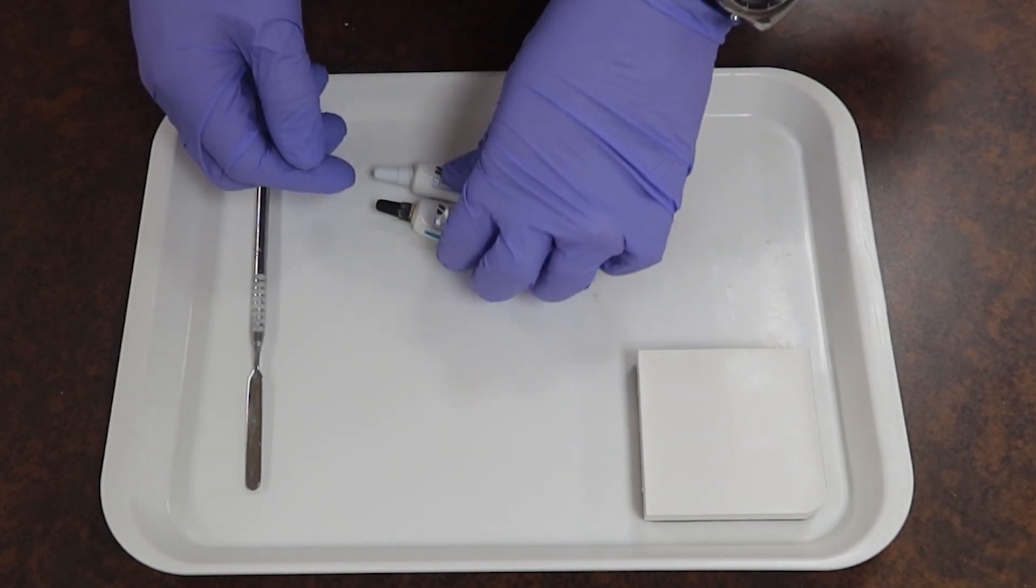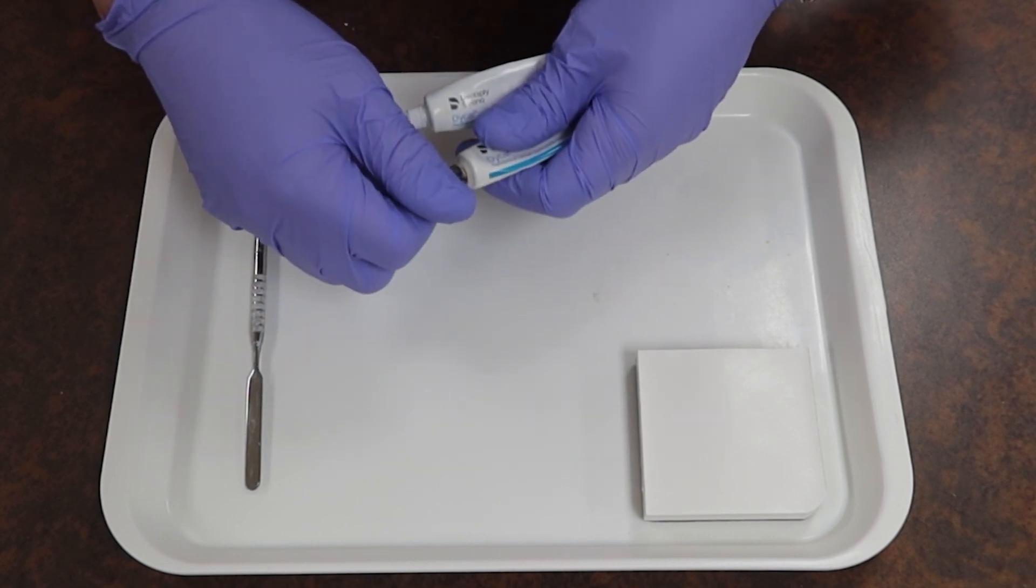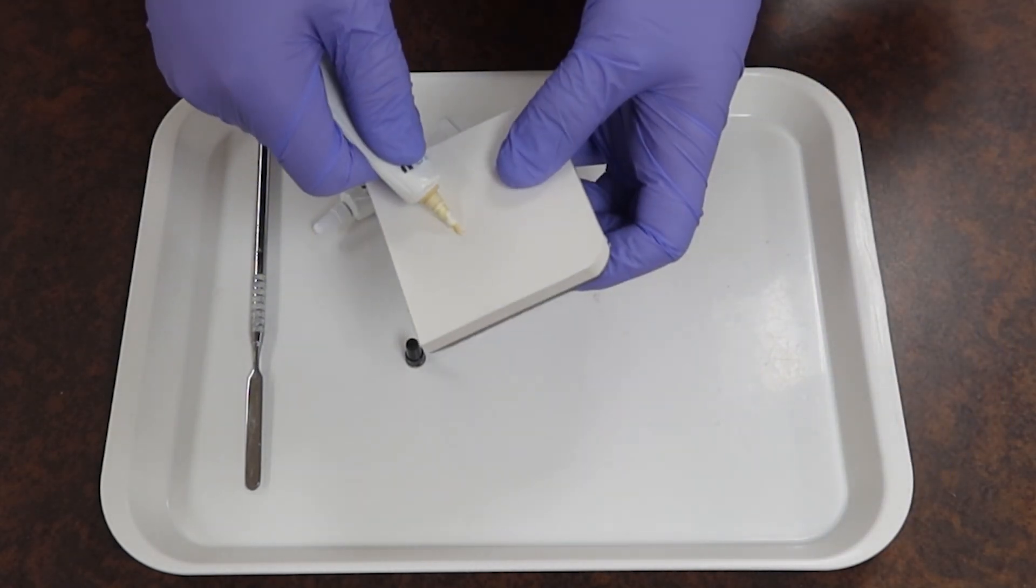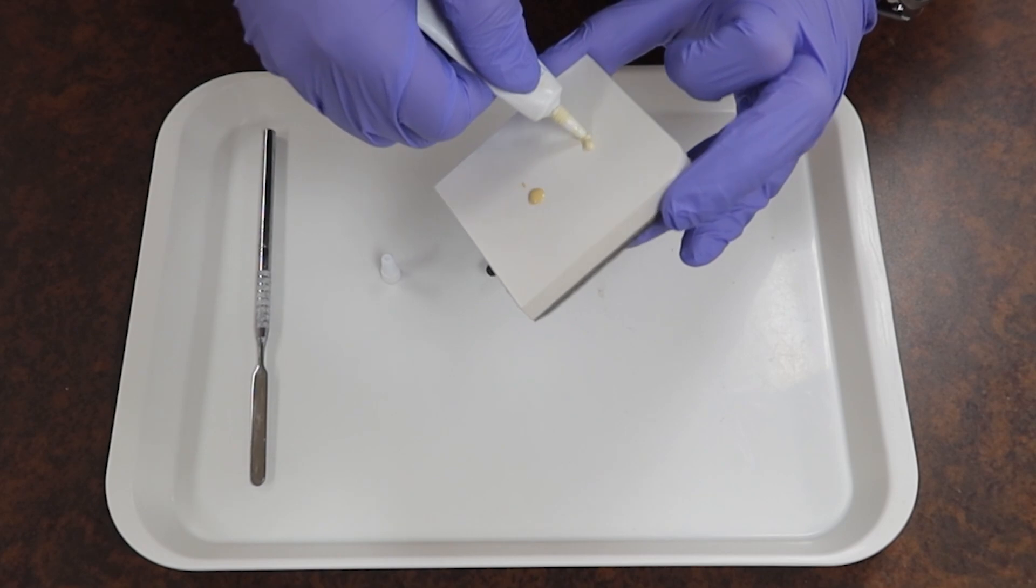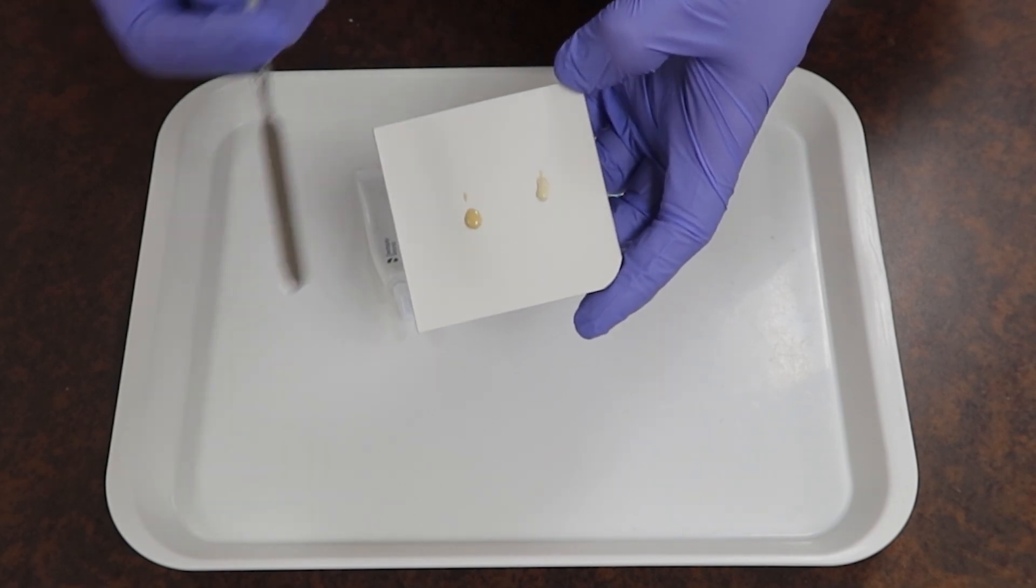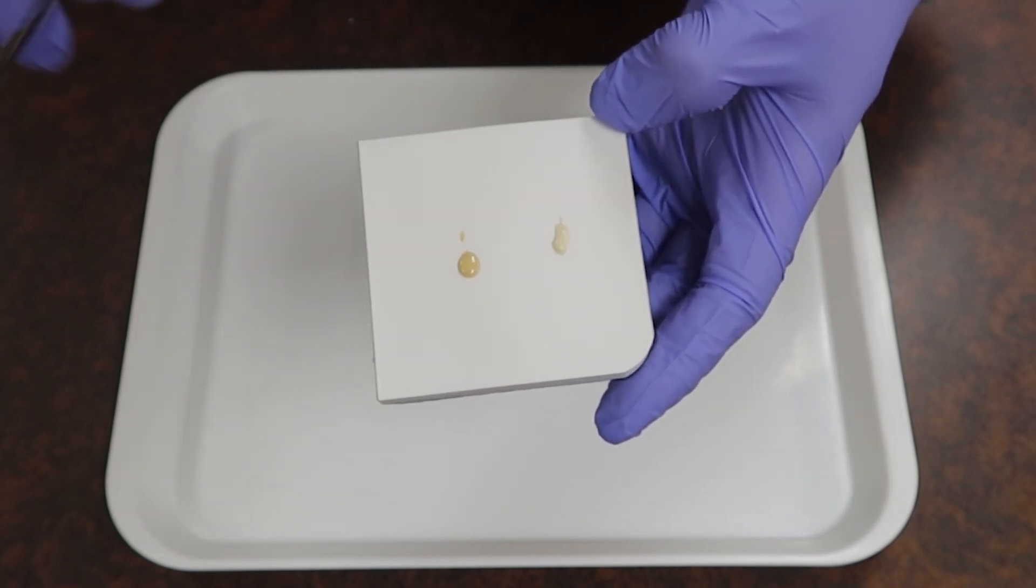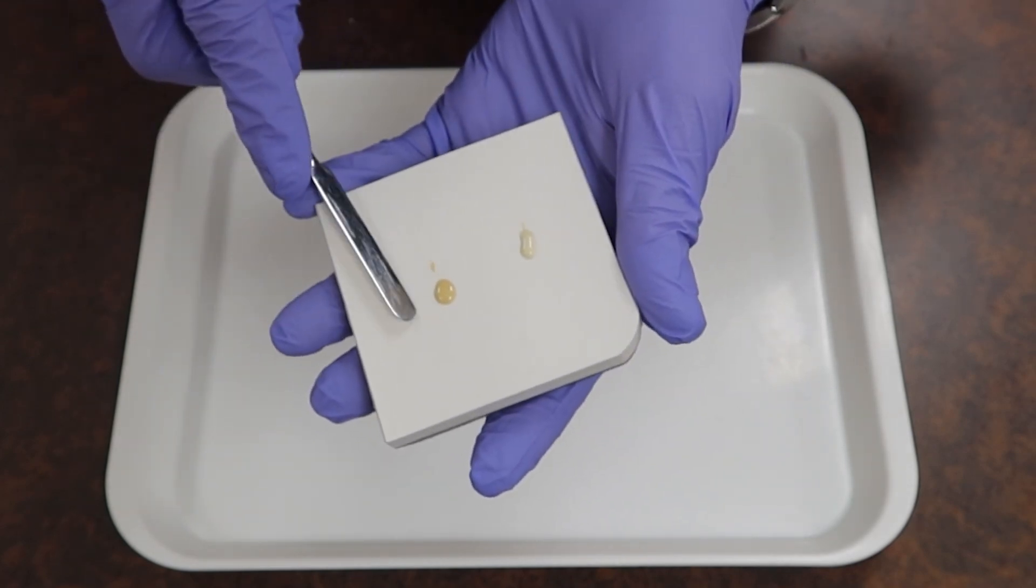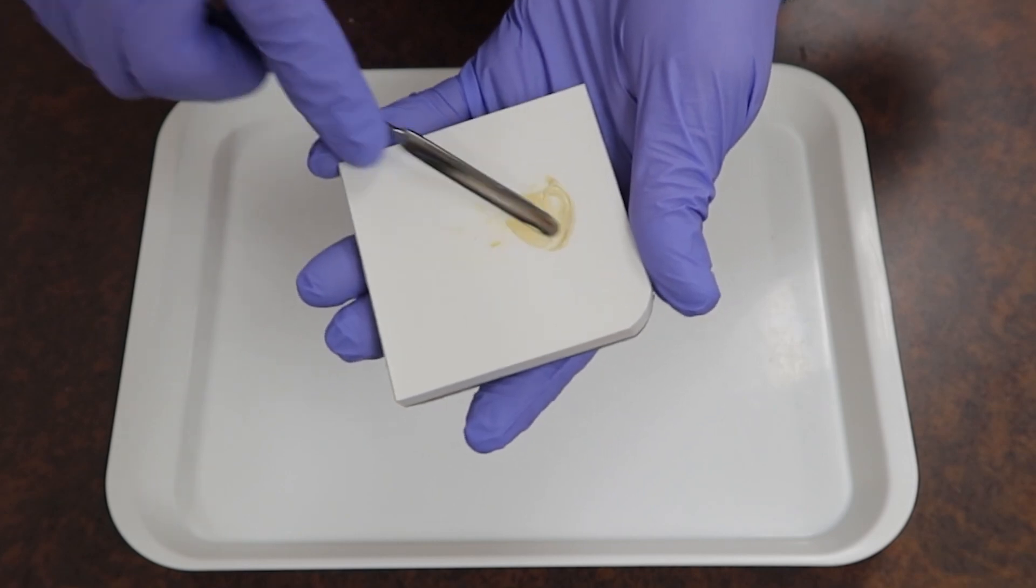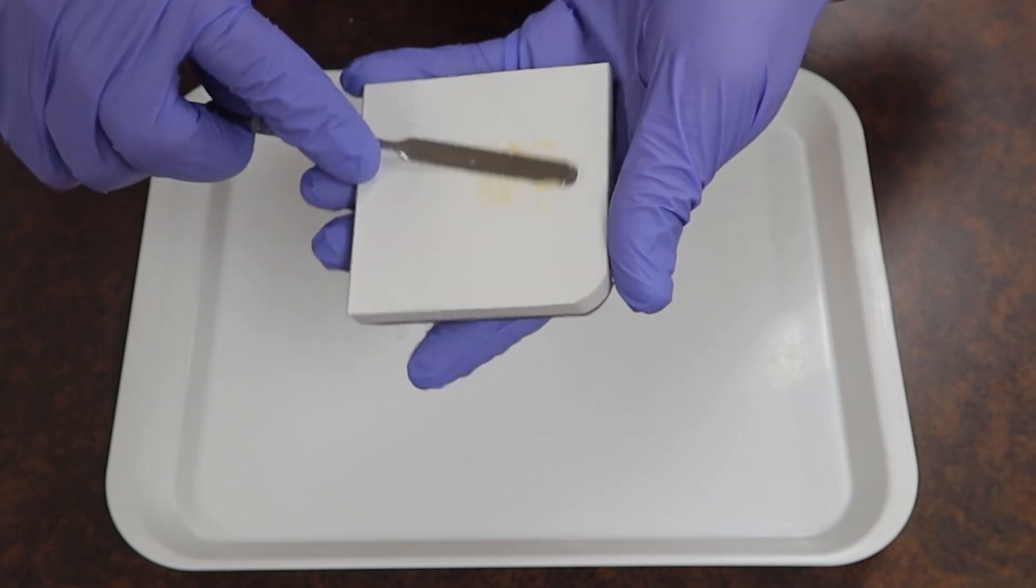But with the same situation, if you just go and take your caps off, make sure that you remember which cap goes to which so you don't mix the internals of the caps with the rest of the materials. We can go ahead and dispense it onto our mixing pad. Making sure that it's equal in size. Now I have way more than I need, but this is to mainly show you how to mix it and what to look out for. You notice that we have two separate colors that when we mix it together should just be one. And so with that, I can go and take my spatula and just mix it together. The nice thing about this is that it's a pretty easy mix. About 10 seconds to do the whole thing, pass it off the doc, and about 60 seconds after application in the mouth for it to dry up.